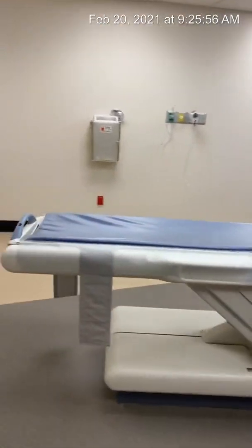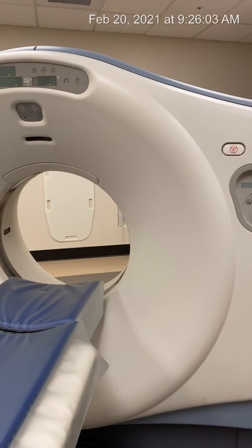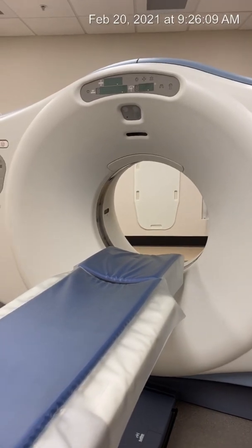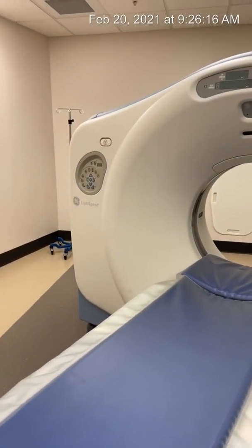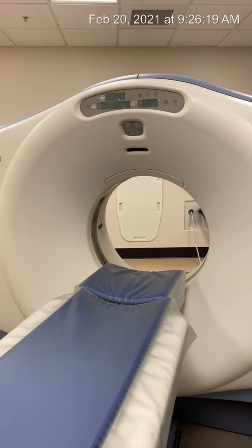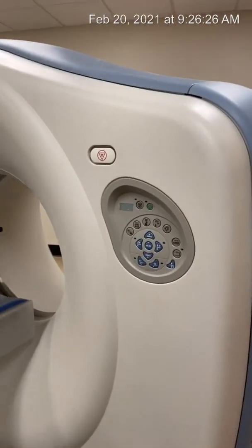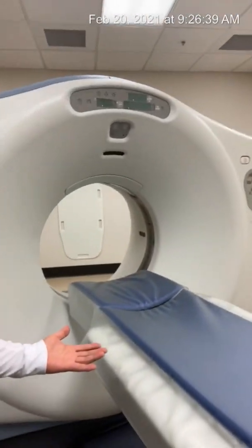So this is what you call a GE 16-slice Lightspeed. It's one of the oldest CT machines. It's a 16-slice, which isn't too modern, but you can still get really good exams out of it. This is actually the best Lightspeed GE I've ever seen because these are old. The reason this one is still so nice and pretty is the fact that it doesn't get used. If you don't use your machine, it's going to stay brand new and beautiful. Look how beautiful this thing looks — it looks just like a brand new CT machine.